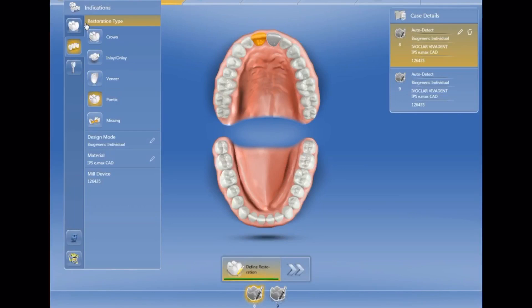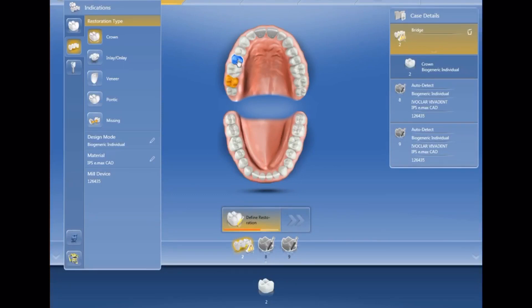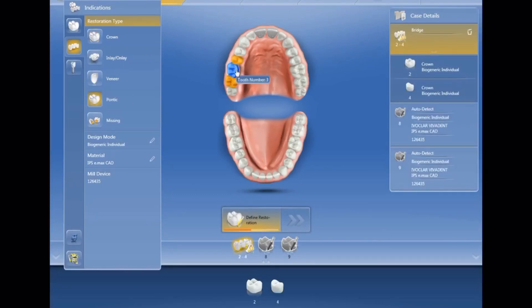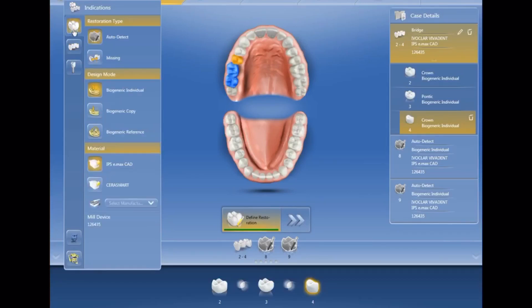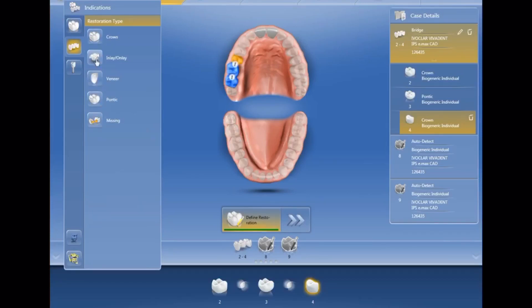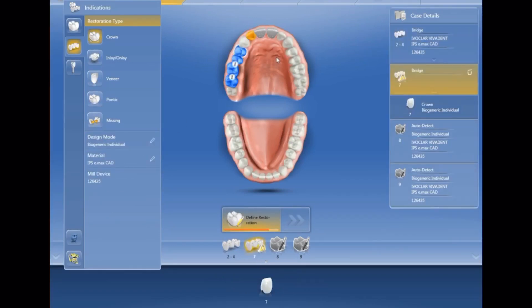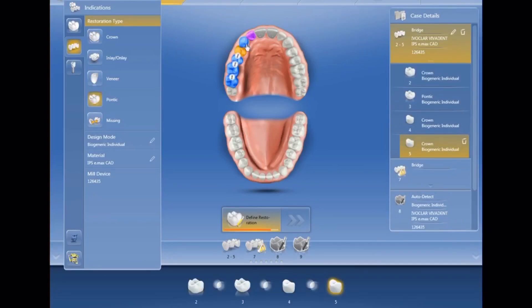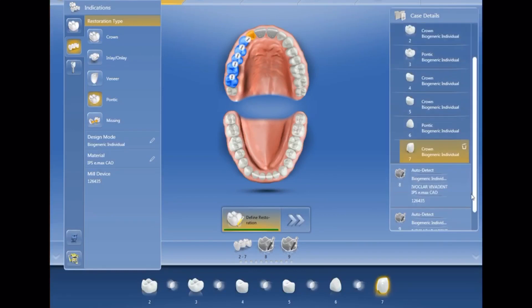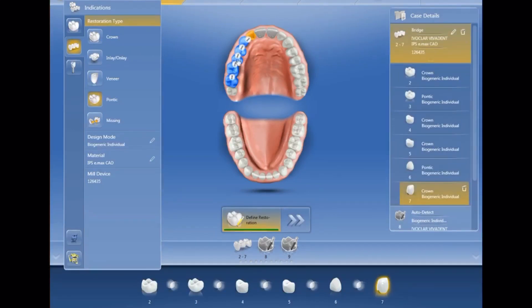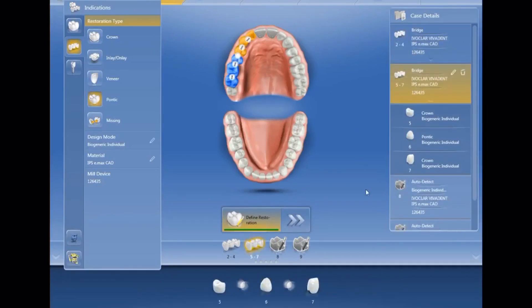So I deleted it — though I didn't need to do that, as we learn later. I set up the bridge again, the two abutments, and set up the pontic on the posterior bridge. I was figuring out how to do this as I went. Here are the abutments on the other bridge and the pontic, and then I had the bright idea of deselecting the connector between the two bridges. Deselecting that connector separates the bridges — I didn't realize it was as easy as that.